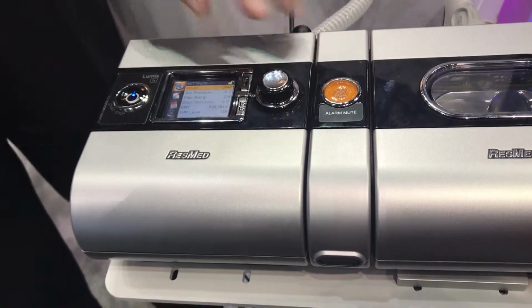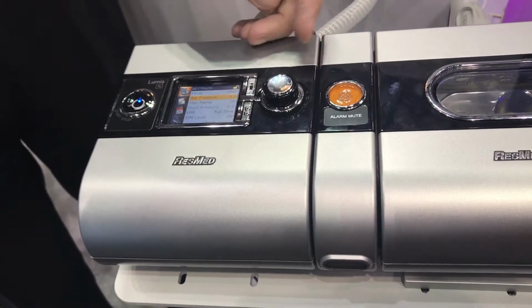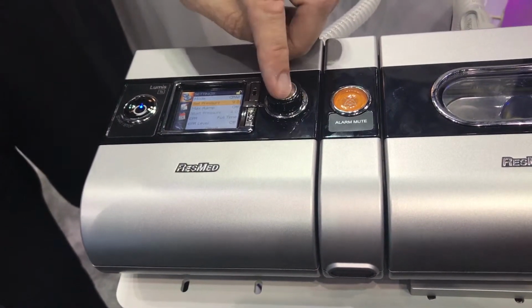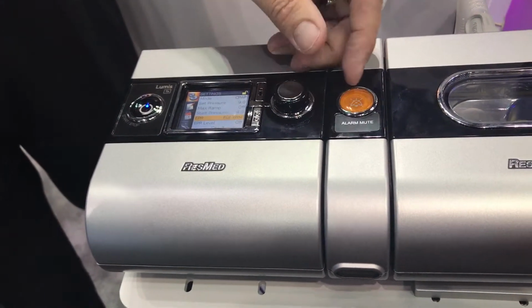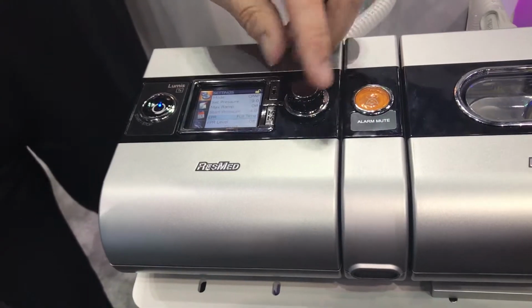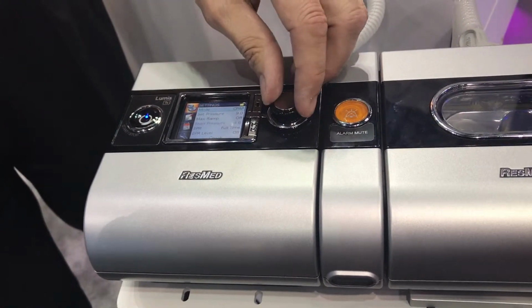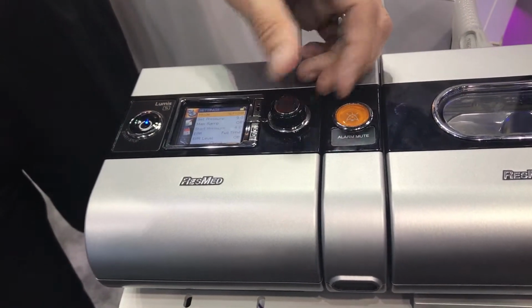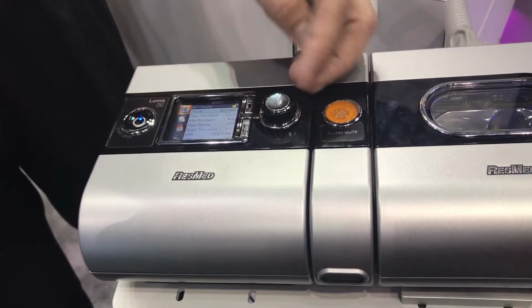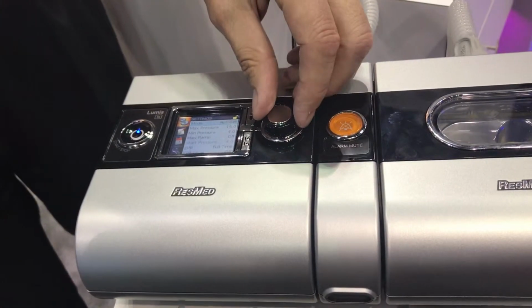I'm ready. Okay. So if I'm in CPAP mode, now the device is going to tell you that it just wants you to set the CPAP pressure. If you're going to use any ramp, or if you're going to be using any expiratory pressure relief, right? And the device is on right now. So if the physician told us that we need to move this patient to auto set, then it would tell me to give a high and a low pressure, and it will auto adjust within that range.